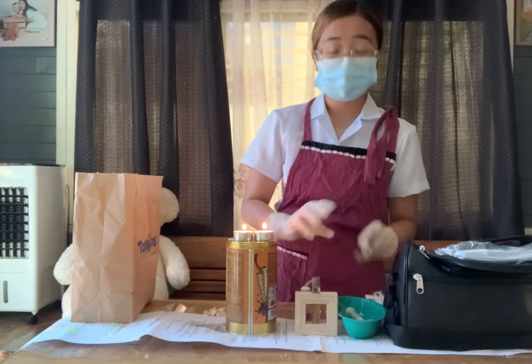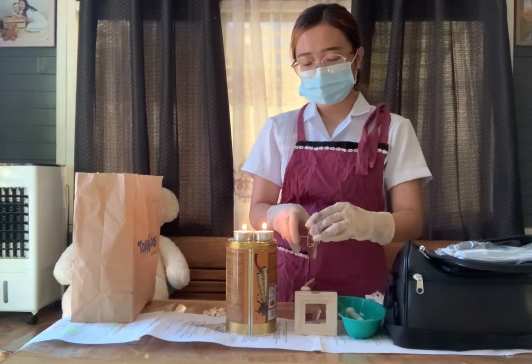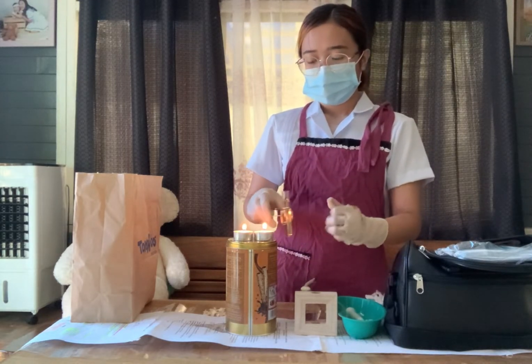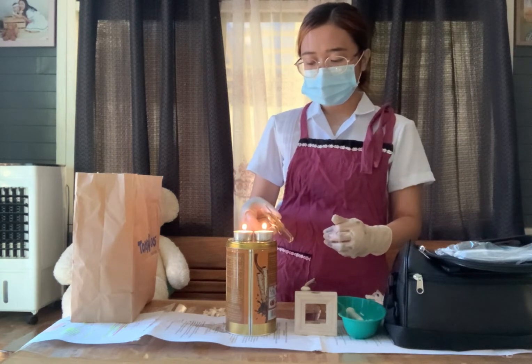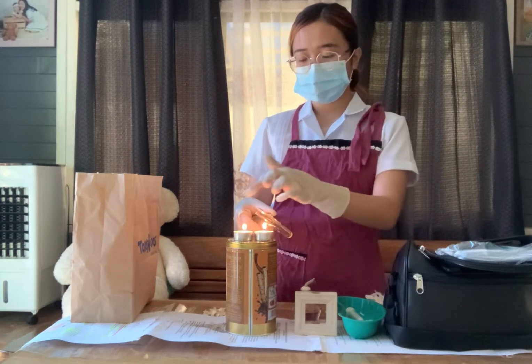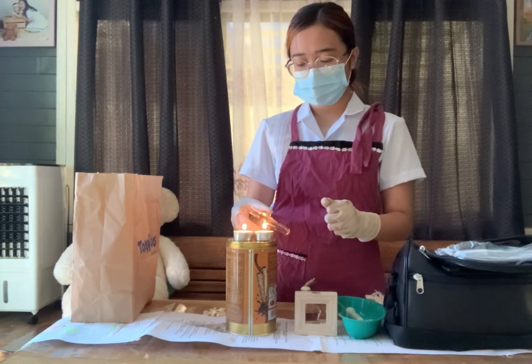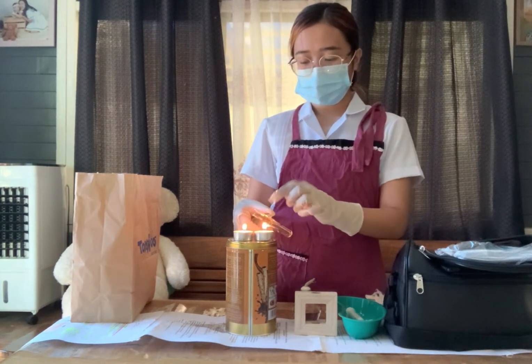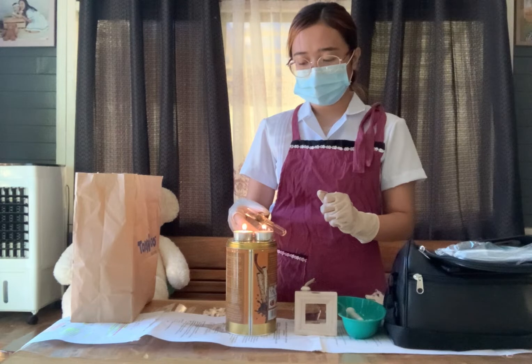After that, we need to heat the upper portion of the test tube, making sure that the mouth of the test tube is not facing the examiner or the patient. We need to heat the upper part until it reaches its boiling point.